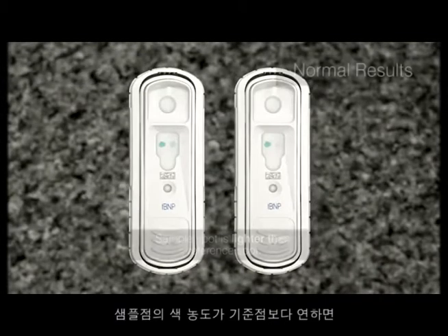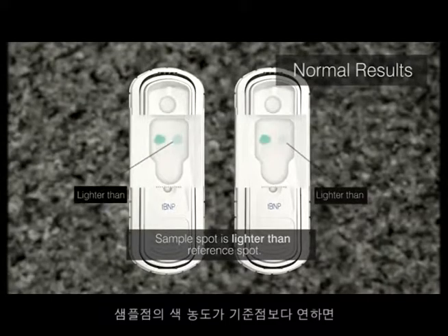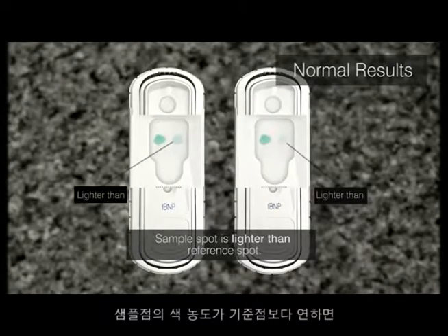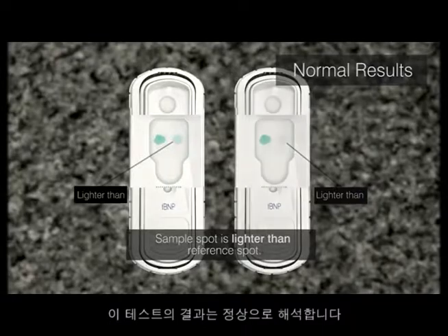If the color intensity of the sample spot is lighter than the color intensity of the reference spot, the test is read as normal.